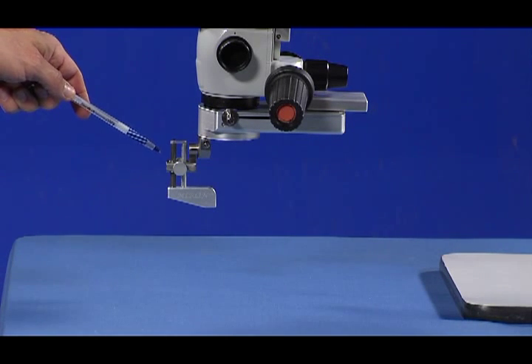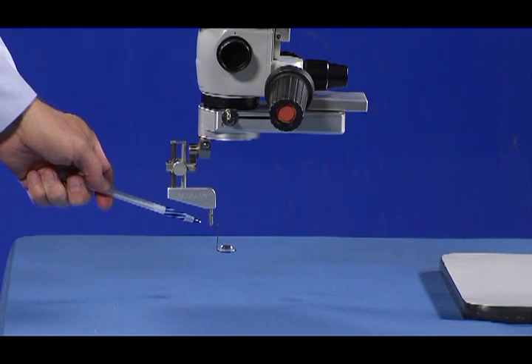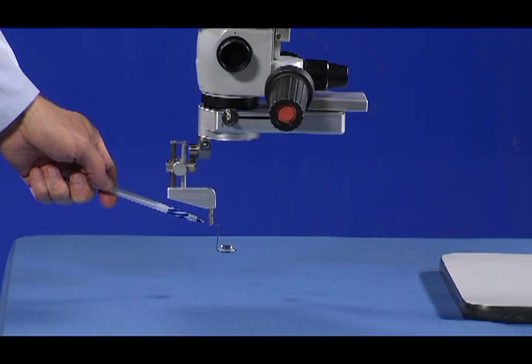The LPU connects directly to the CLA just below the microscope objective lens. Finally, the surgical lens attaches to the bottom of the LPU.